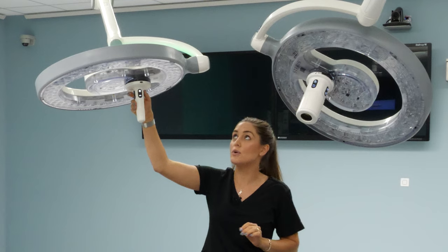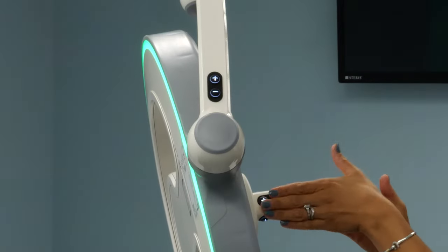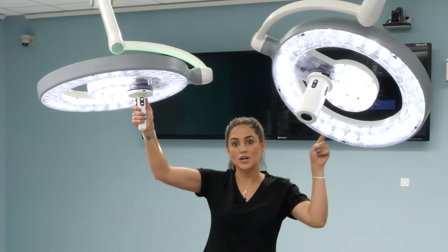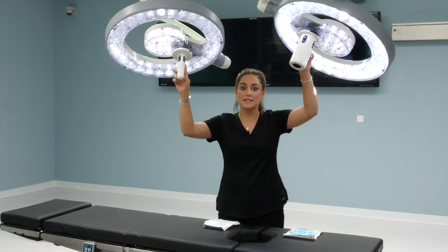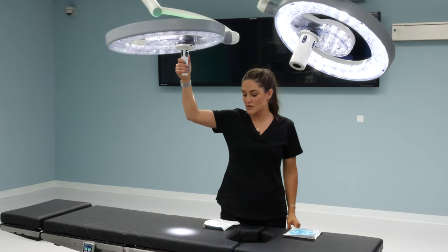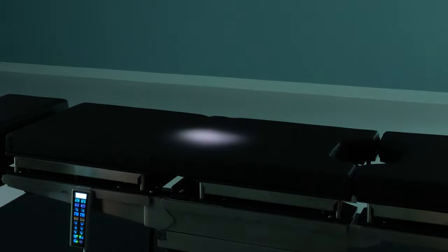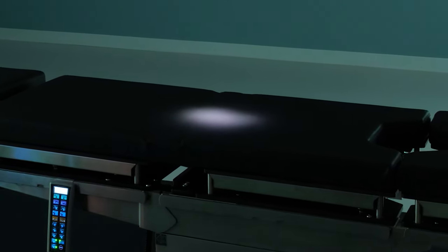To turn them on, you hit the positive again on your non-sterile control or your sterile control. Keep holding and it'll turn your secondary light on as well. The intensity is operated independently from each light head. When you take this all the way down it looks like the light's off, but in fact that's your task mode light used for minimally invasive cases. In combination with your accent light and task mode, you have plenty of illumination on your back table.